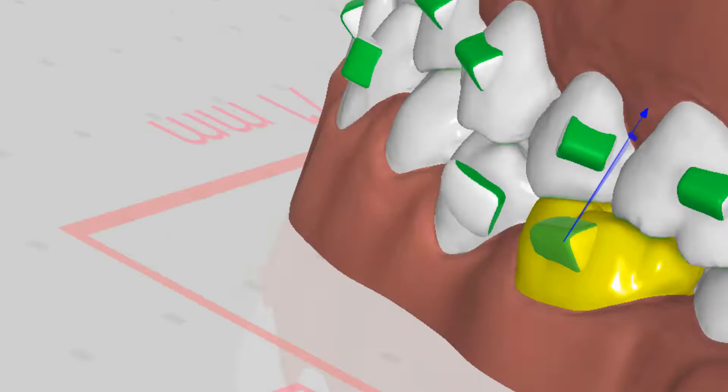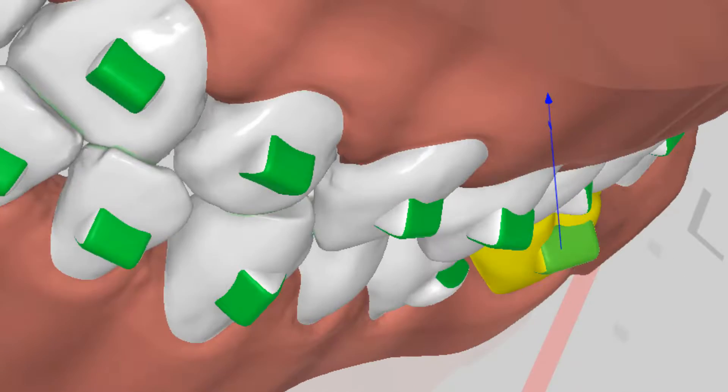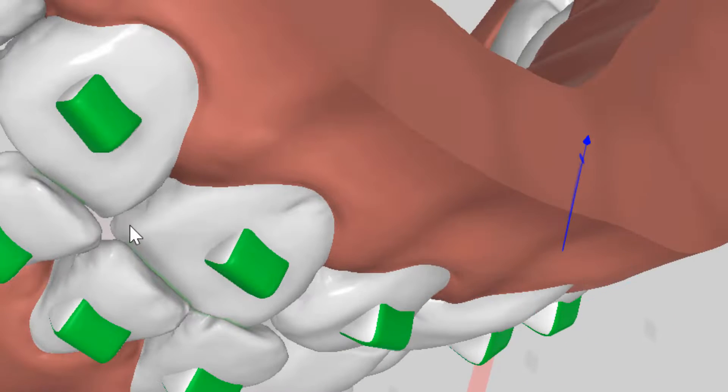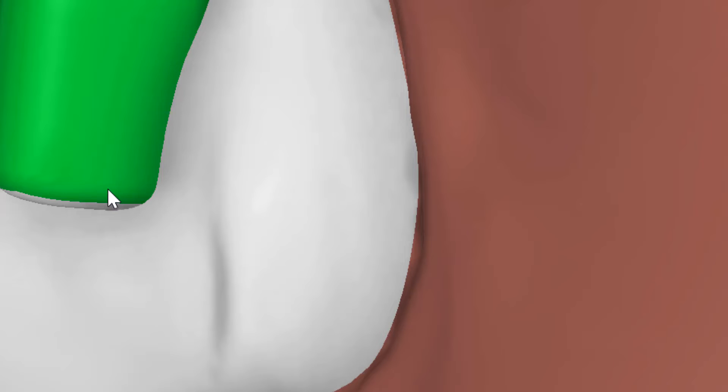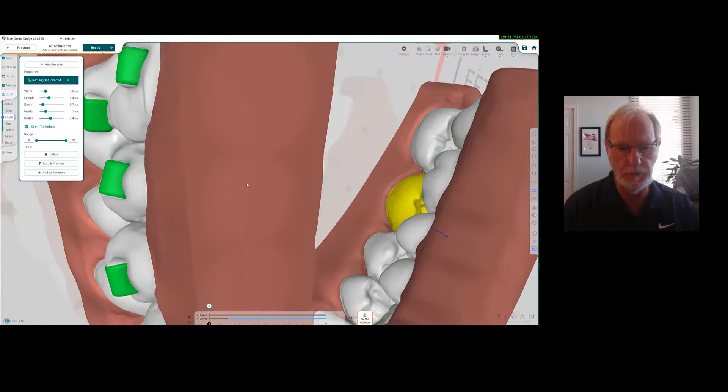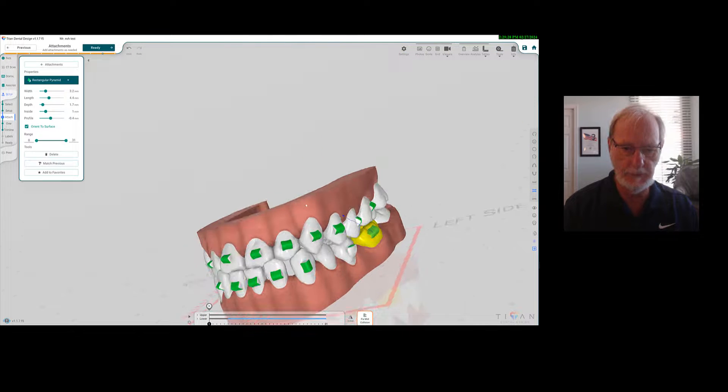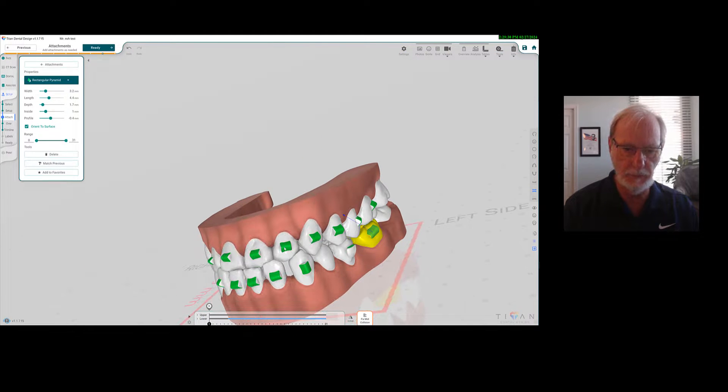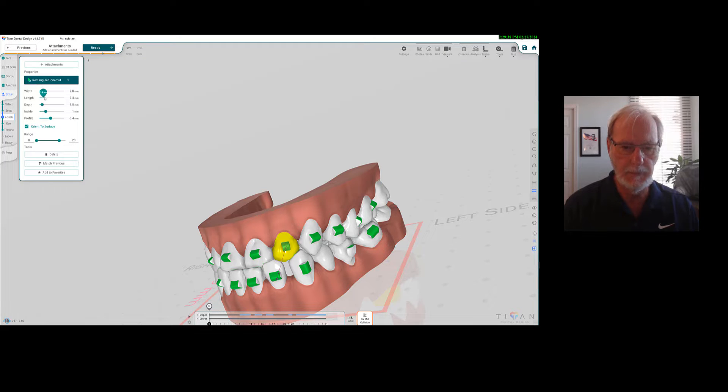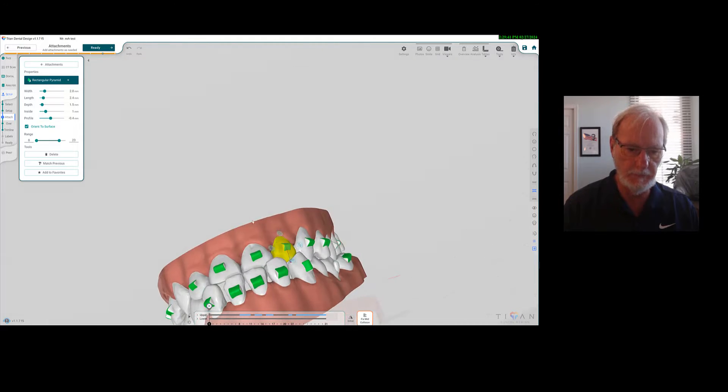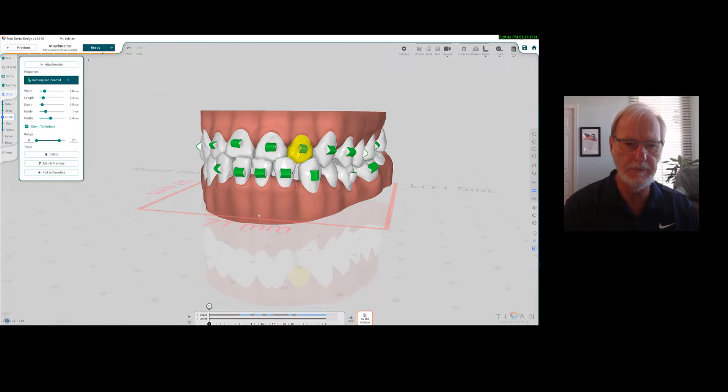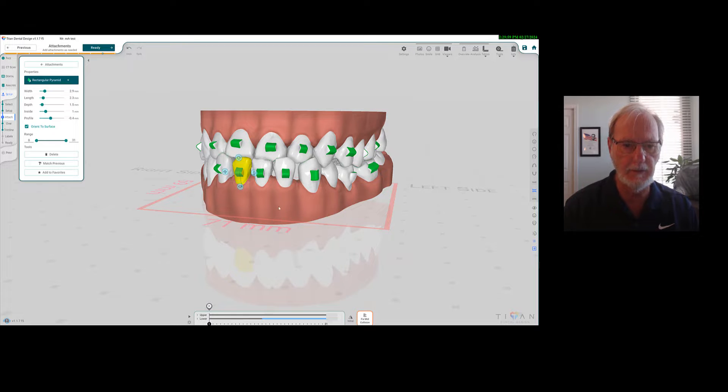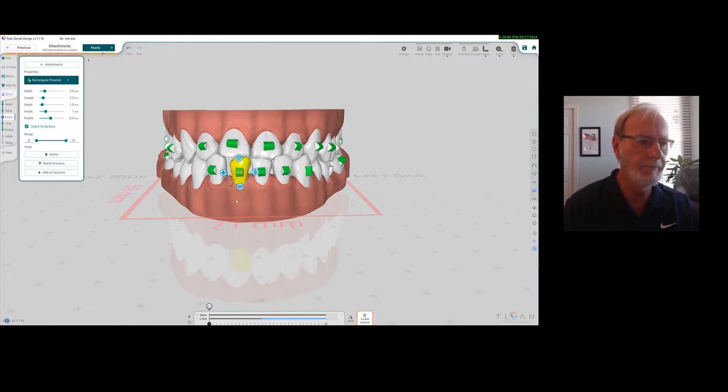There are a lot of good, and what I also do like about these attachments, as you can notice, is they are not beveled, but they are all smooth. There are no sharp angles. On this one, as an example, I'm going to make it a little bit less wide to increase the inter-attachment distance, and same here. All this you can do, and just a demonstration doesn't mean it's exactly perfect. So this is done.